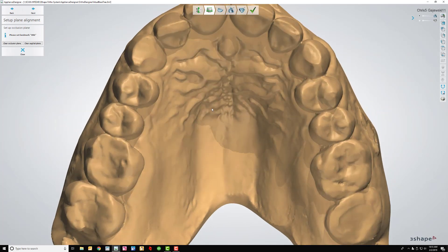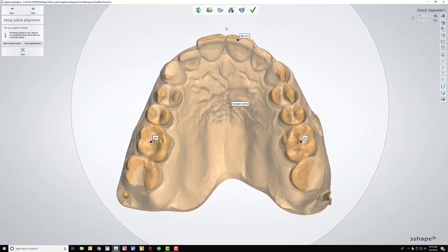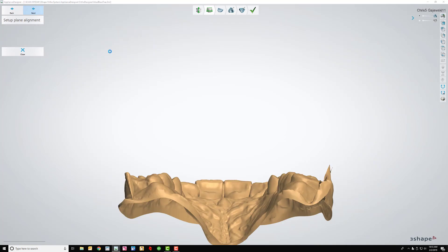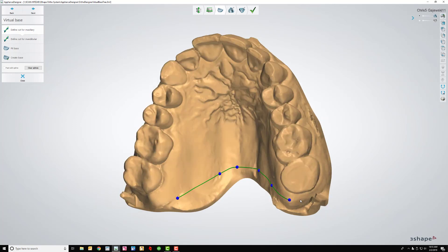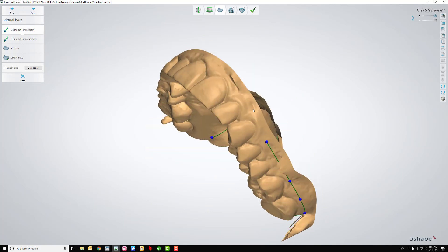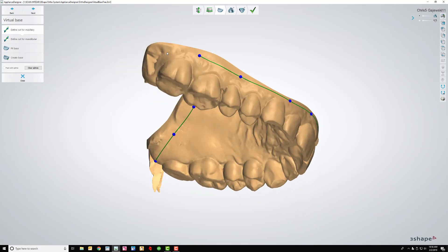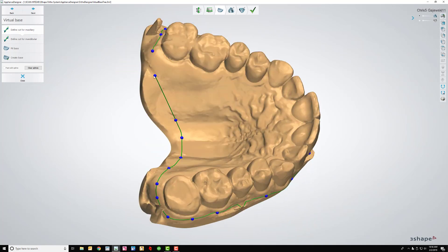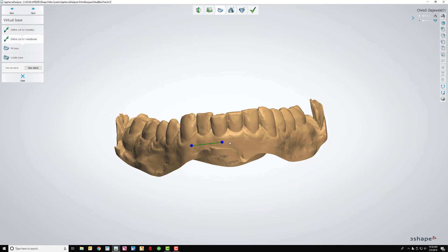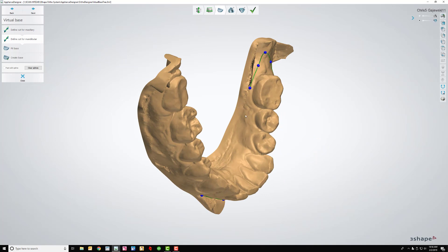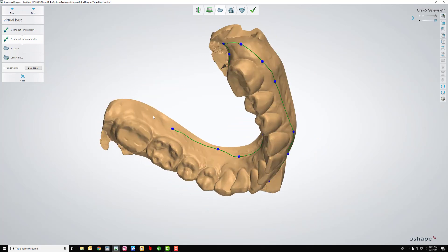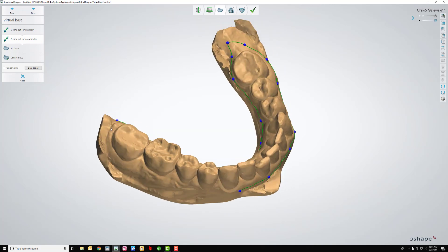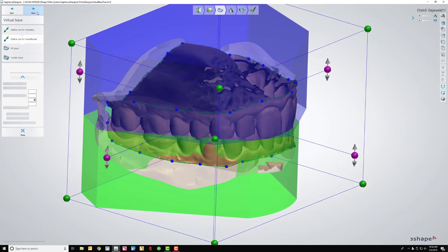And then the first thing that I want to do is prepare model set. So the first thing it's going to do is ask me for the occlusal and sagittal planes. I want to make these. I'm not being very careful here because all that I'm trying to produce is working models, just get them to the printer as quickly as I can. I do the spline lines as close to the teeth as I possibly can just because I don't want to waste resin. Yes, I do need to make aligners for myself. I'm working on that. I've been too busy to do it. These are pretty good scans.